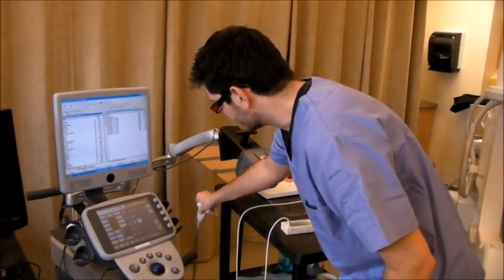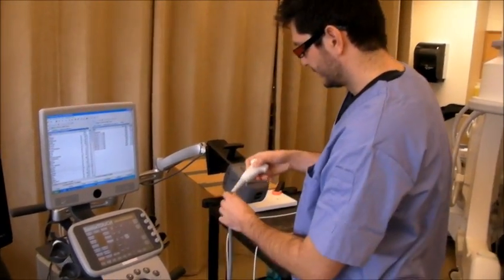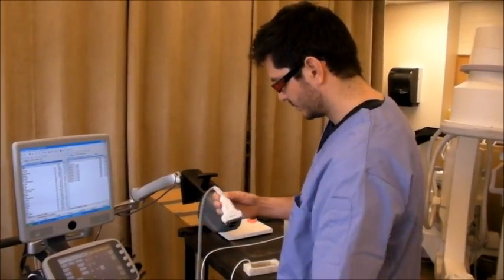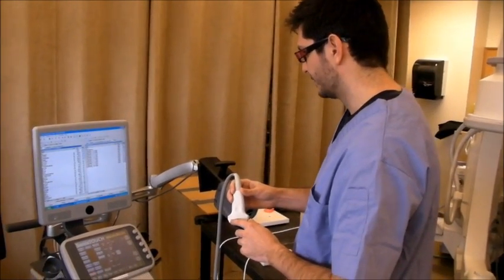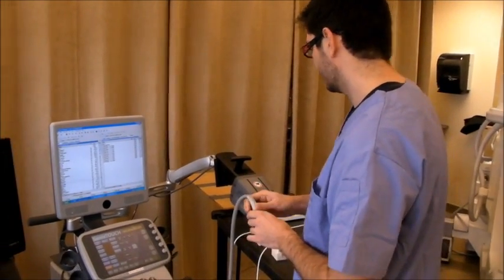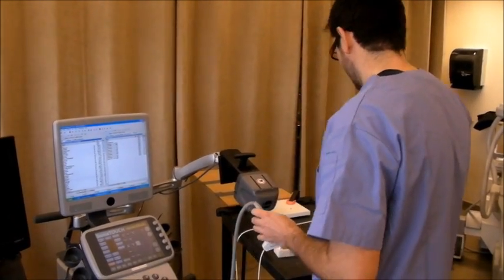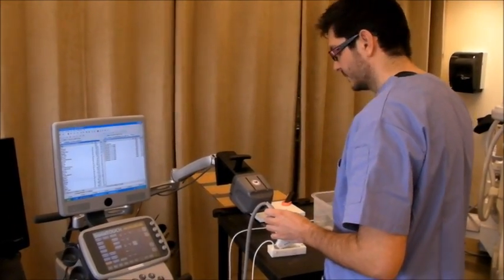An L14-5 ultrasound probe with the built-in NDI and a bucket of water.